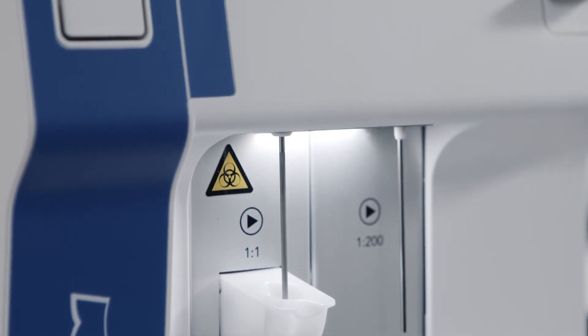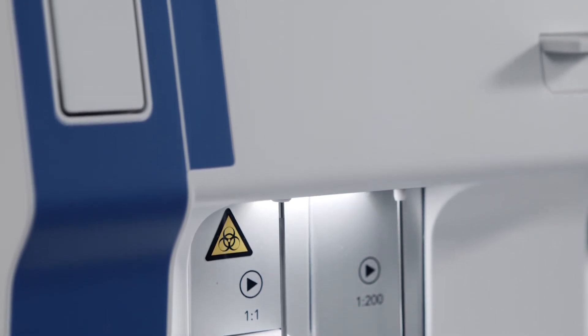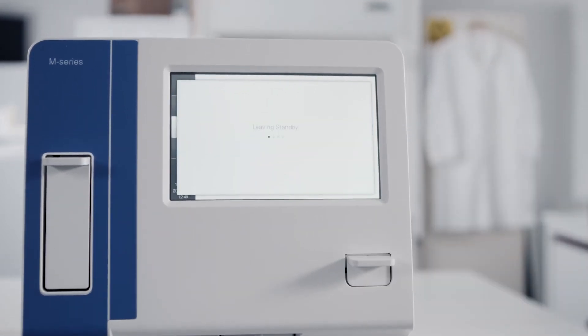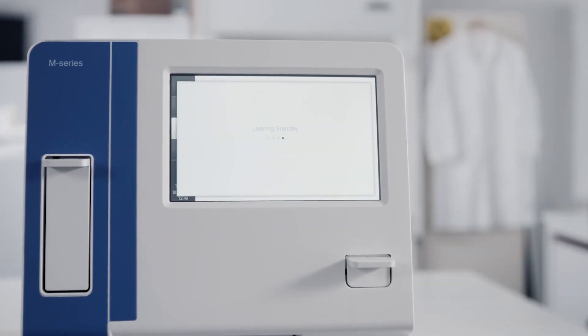There are no long drawn-out startup or shutdown procedures to follow. You can leave the unit on without worry. It simply enters sleep mode and only needs a touch of the screen to instantly bring it back to full operation.